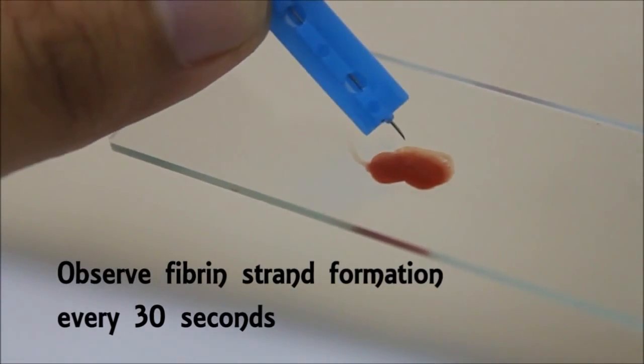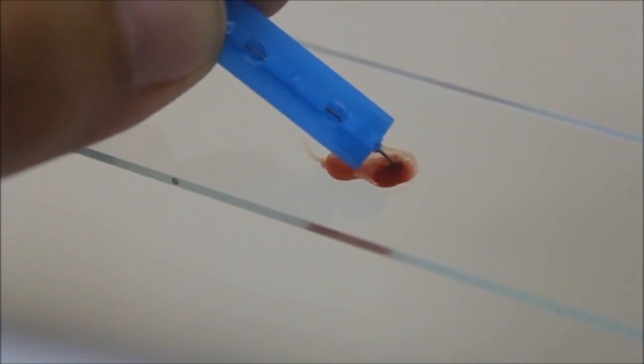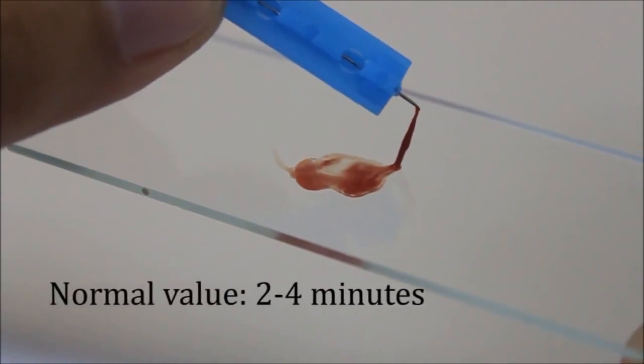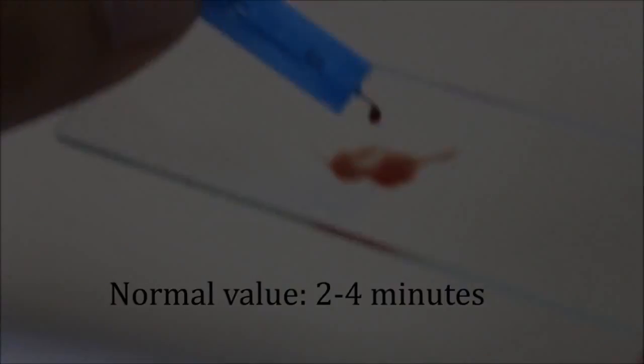Observe for the formation of the first fibrin strand. Once this fibrin strand is noted, stop the timer. The time that elapsed is taken as the clotting time. The normal value for the slide method is 2 to 4 minutes.